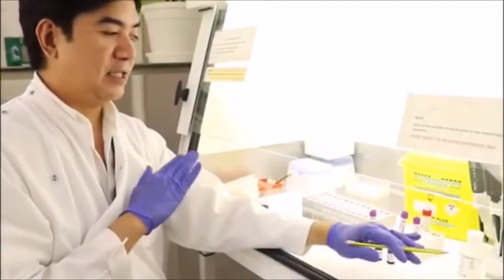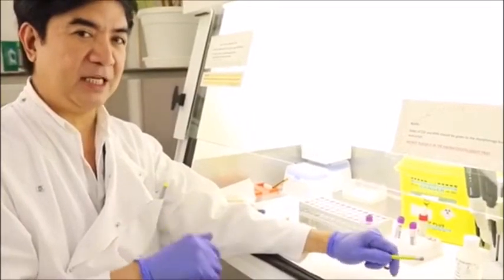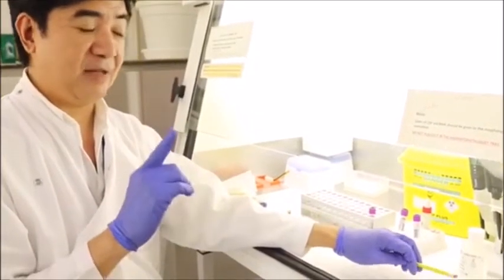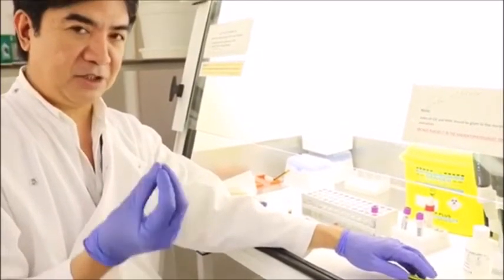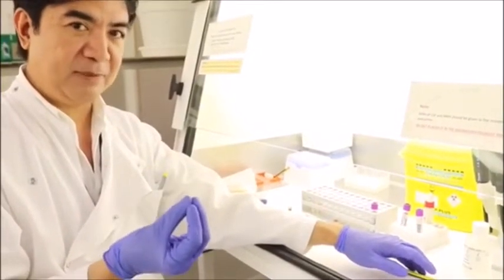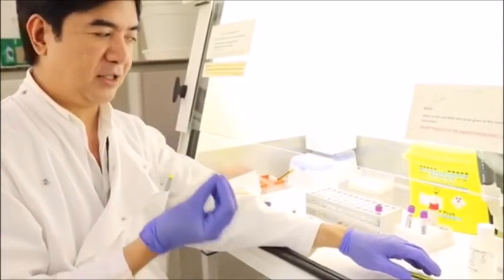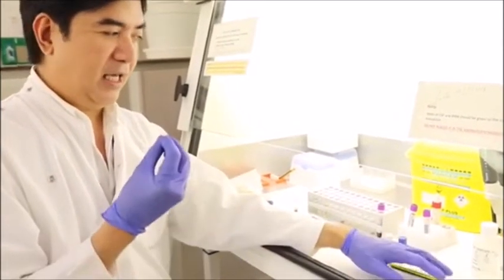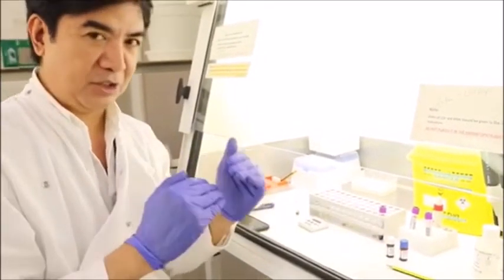okay, since we finished executing the procedural aspect of the G6PD, one of the most important pieces of information that you need to know about performing G6PD is that you have to make sure that your sample does not have the following conditions.